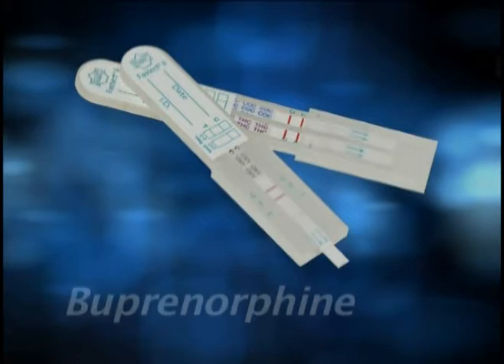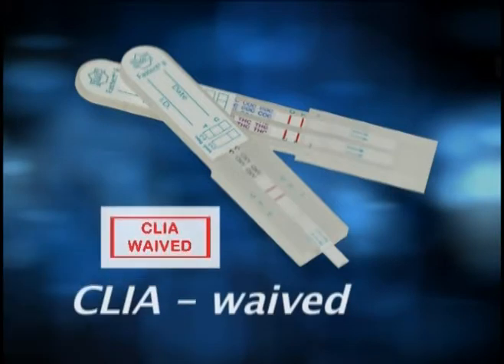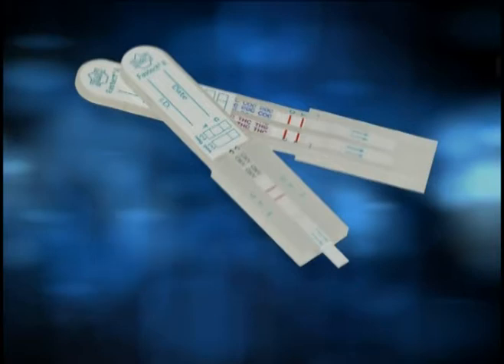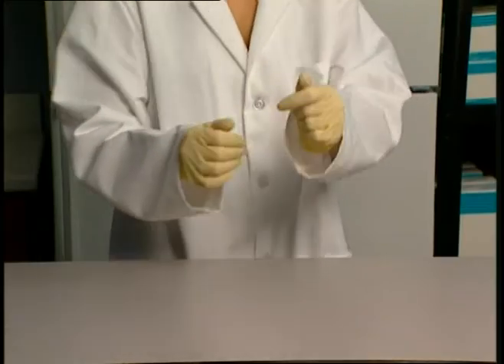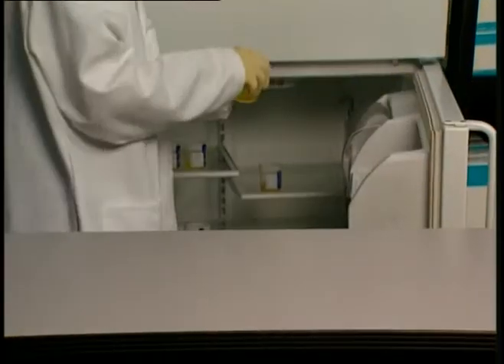FasTech II drug screen dipstick tests are now CLIA waived. The test is formulated for use with freshly voided human urine. Handle the urine as if it is potentially infectious, and proper handling and disposal methods should be established.